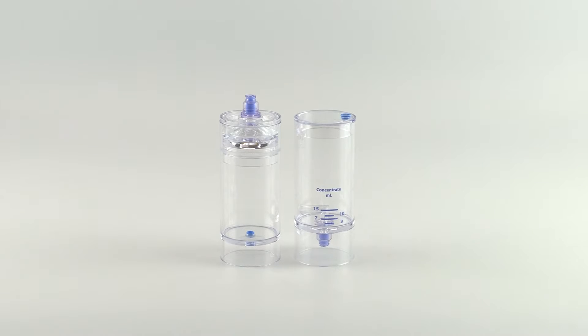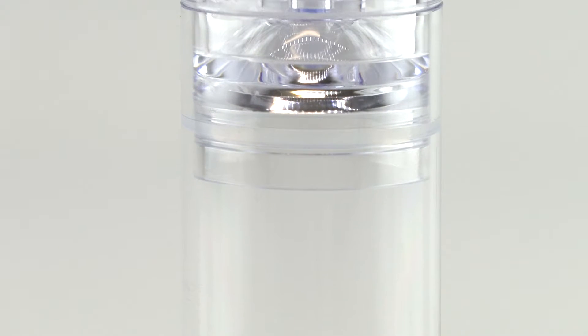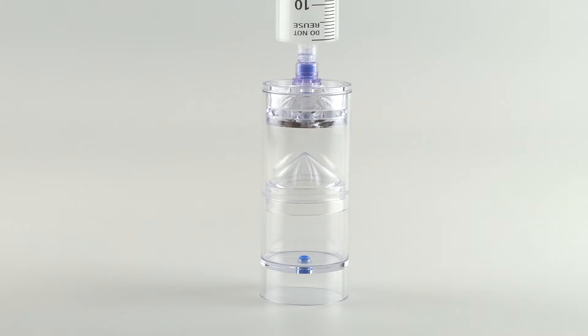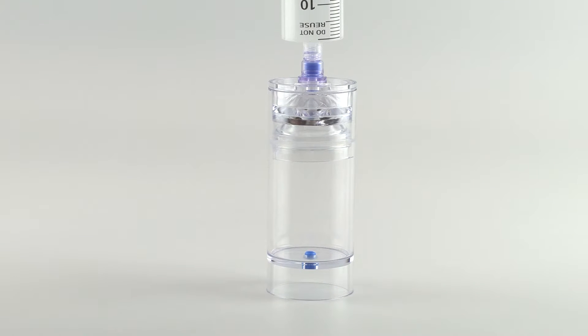Pure2 is ergonomically engineered for usability and performance. The modified concept was driven by the user experience with an ultimate goal of sheer perfection. The new pipeless processing of Pure2 improves cell collection while virtually eliminating the kink potential experienced by its predecessor.